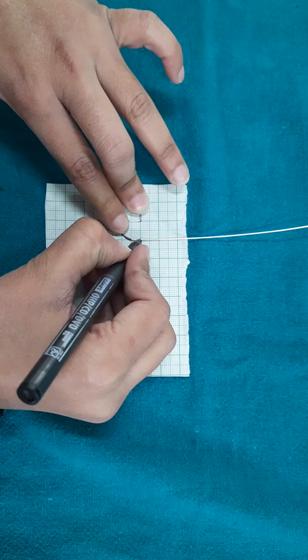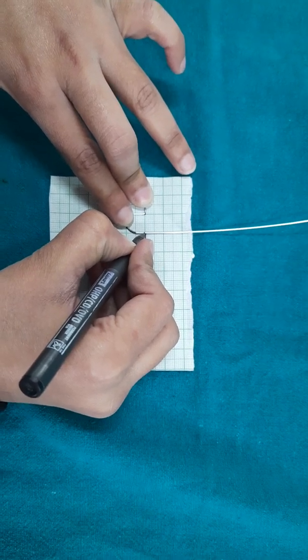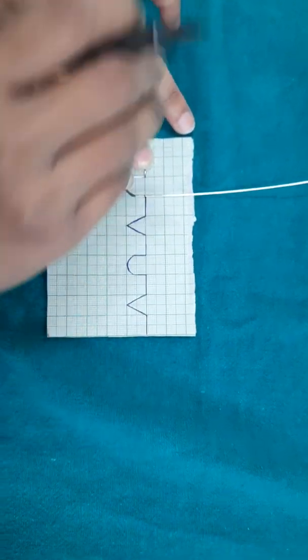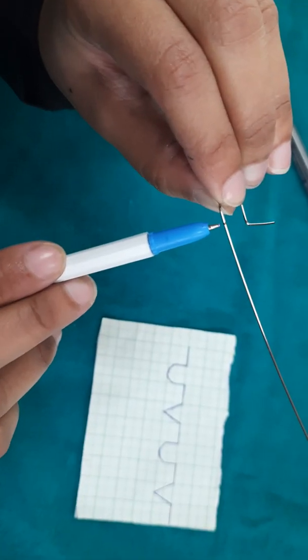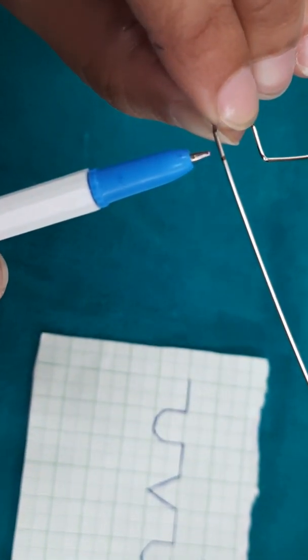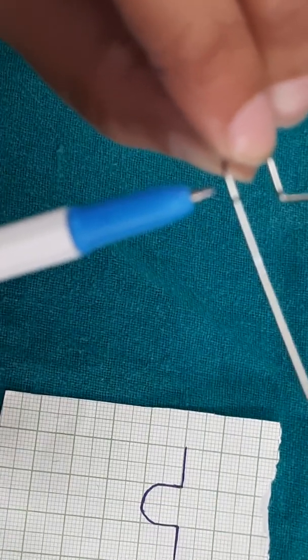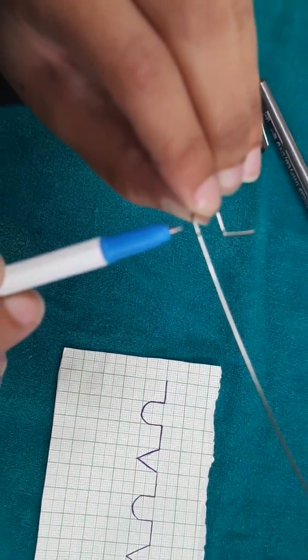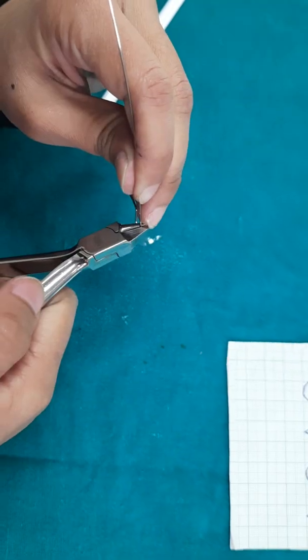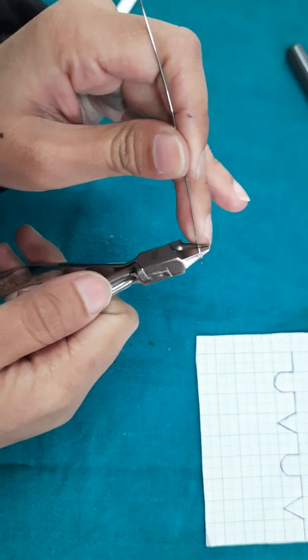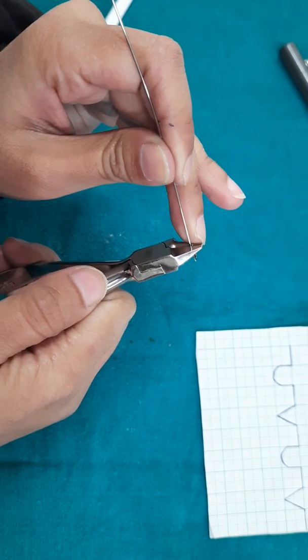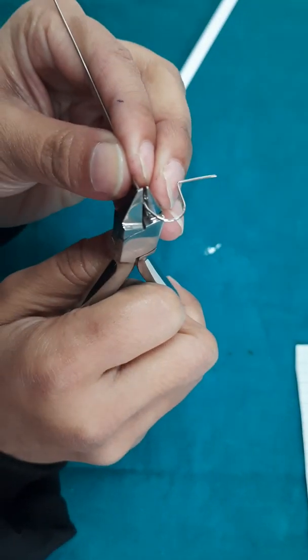And mark the point on the second vertical arm to finish the U. Now give a 90 degree bend on the second vertical arm to finish the U.